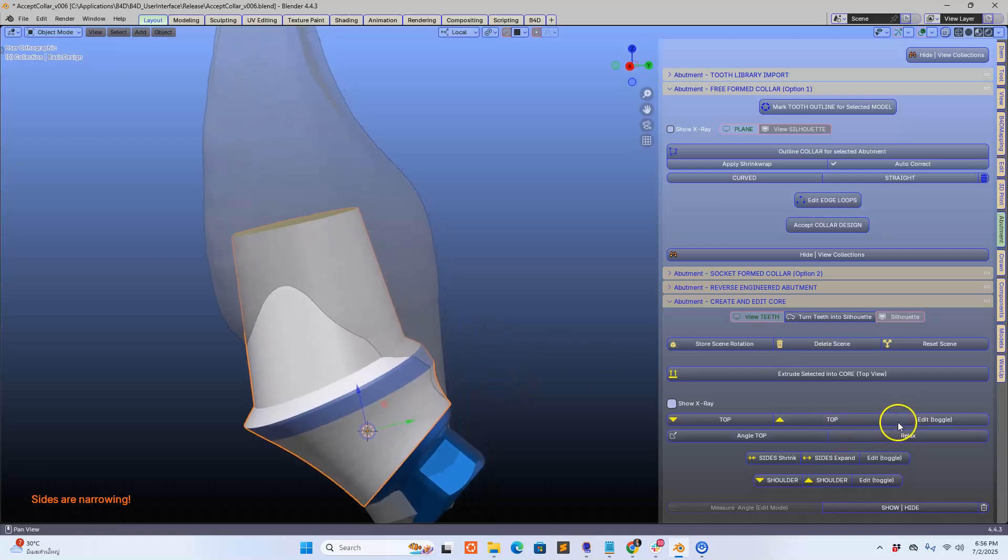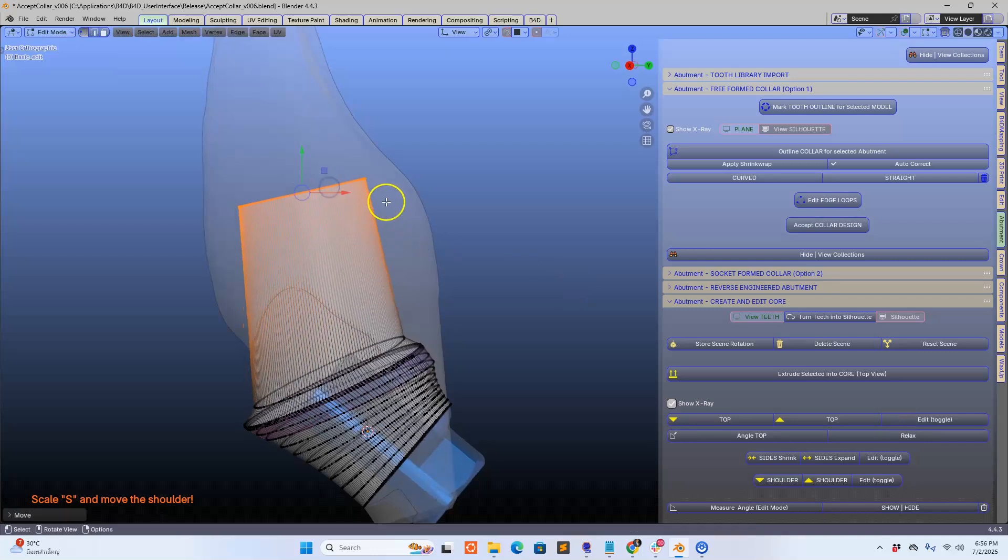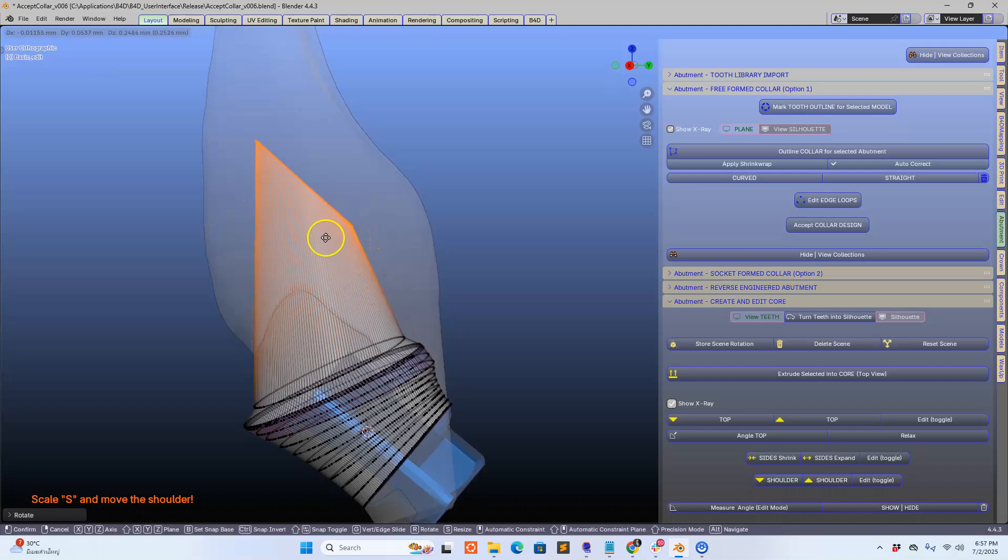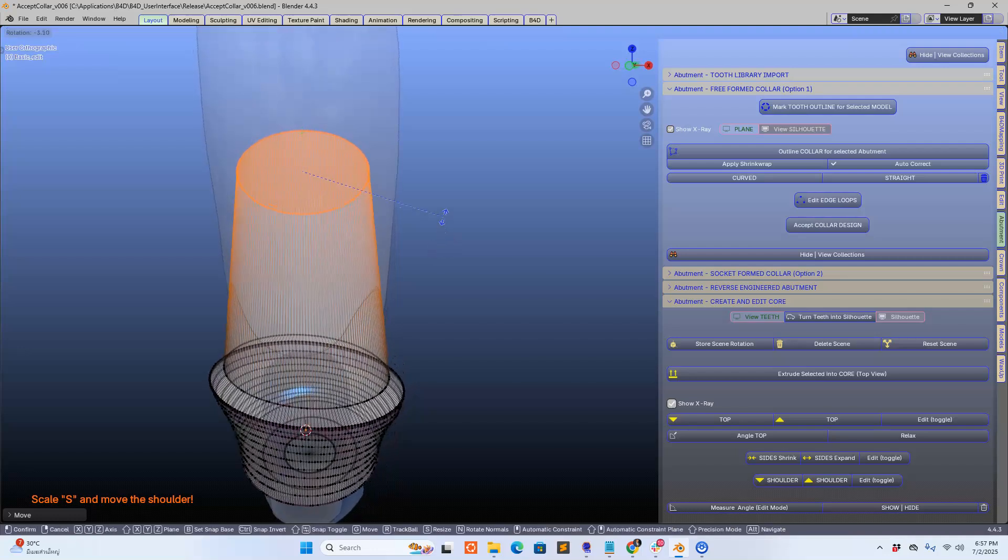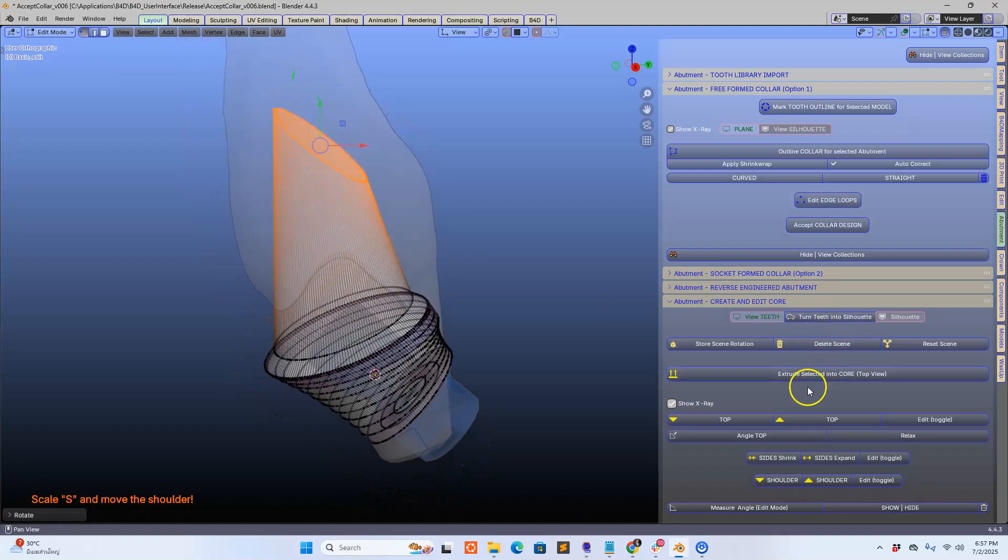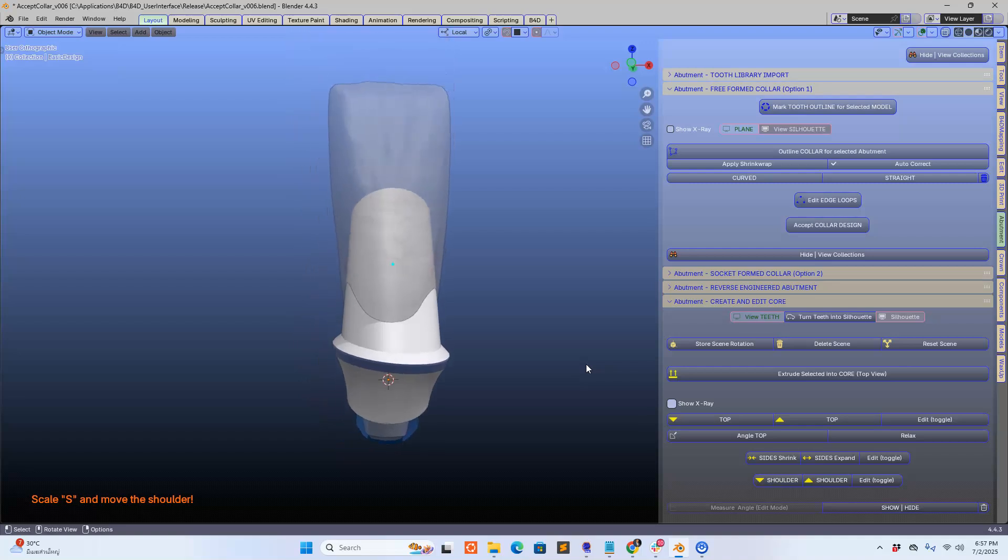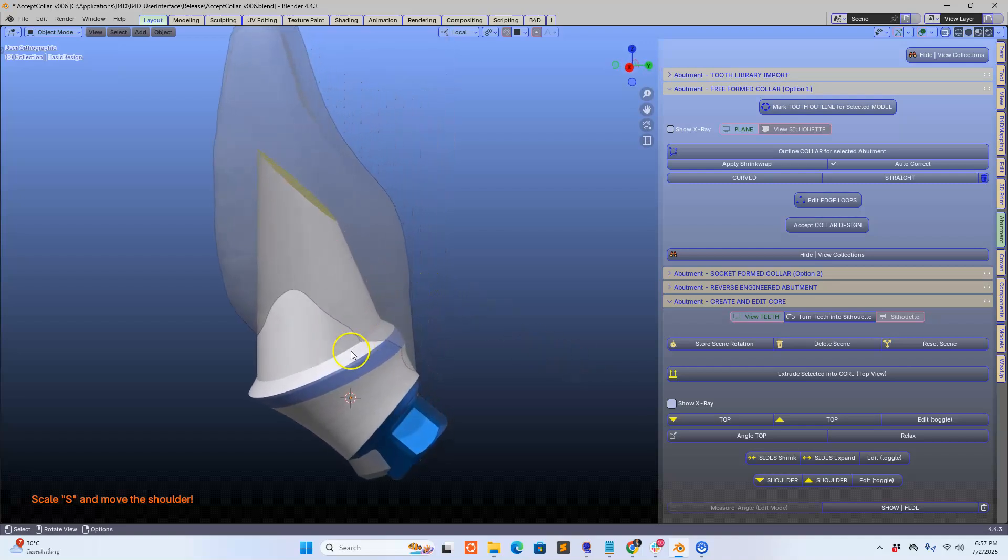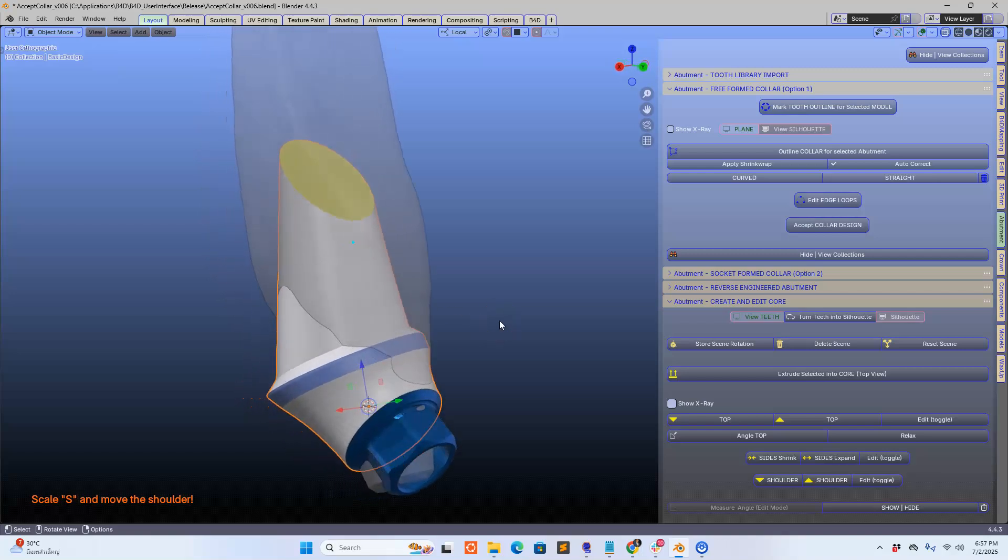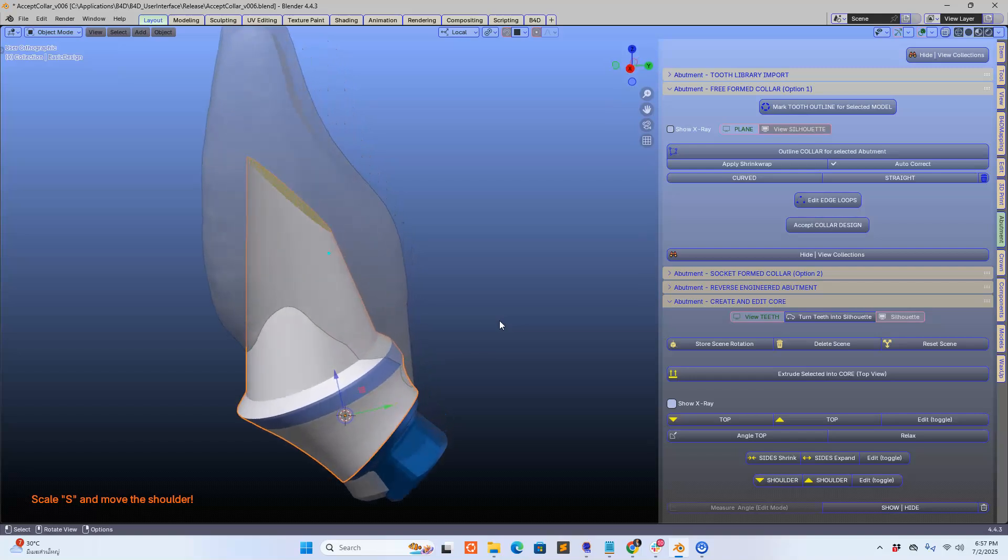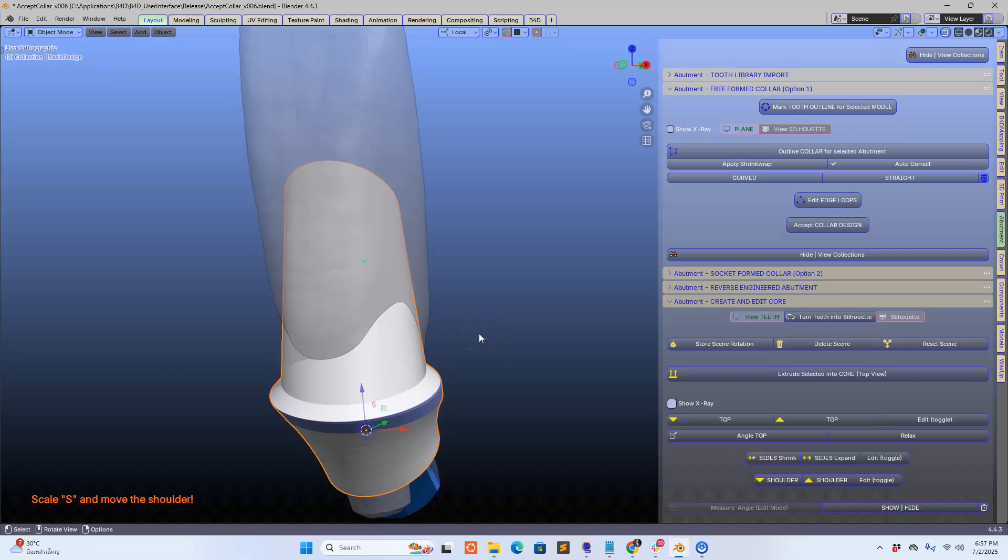I can edit this. So if I go edit I can take this and further put it into a good position, something like that. I can rotate it and scale it. This is looking quite good. So far we haven't had any stress. The stress comes very soon. Maybe not. If it does then I'll just not make a video or just redo a video, but I have tested it the whole day so it should work.